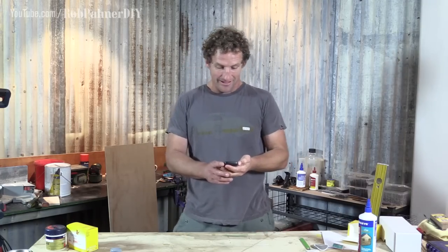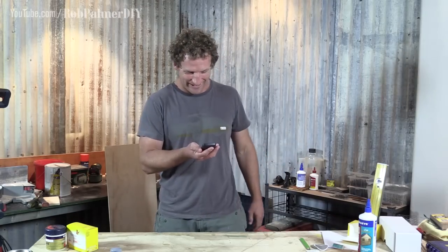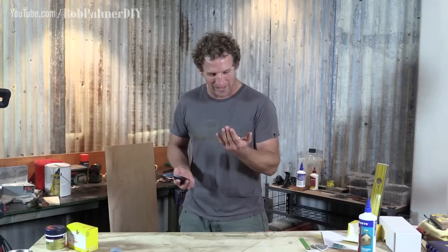Here we go. Turn the machine on. Check glucose — scan sensor to check your glucose. I like the sound. It's 11.6. It's not perfect, but sometimes you're not perfect. You go up, you go down, and that's just the way it is. But this — it's not just telling me where I am, but it's telling me where I'm going. Look at this. Awesome. This is a new day.